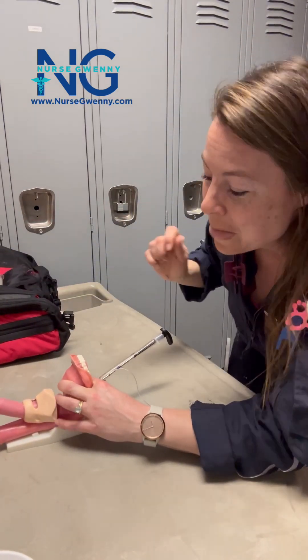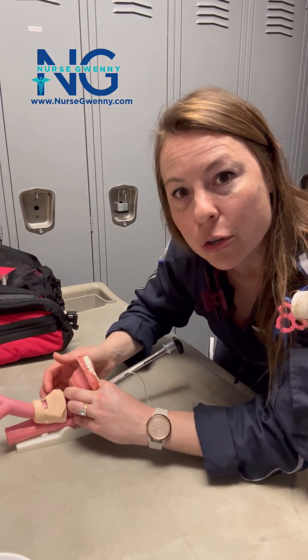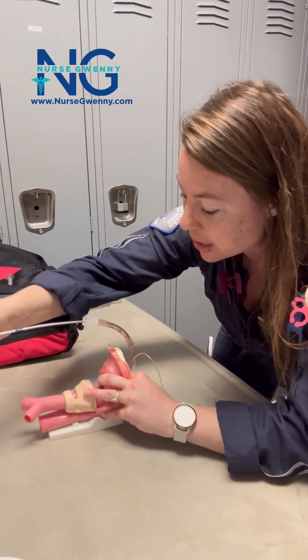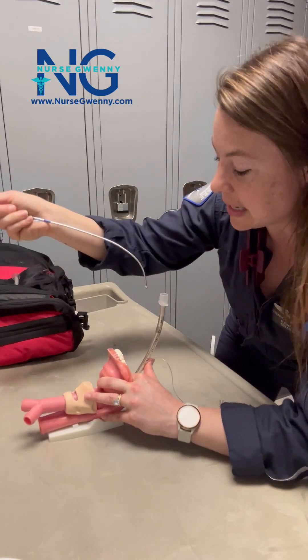Let's get back to the removal. It is imperative that after you pass the endotracheal tube into the trachea, you've got to hang on good to that endotracheal tube. And then when you pull out your rigid stylet, make sure you're following the geometry that matches this rigid stylet.